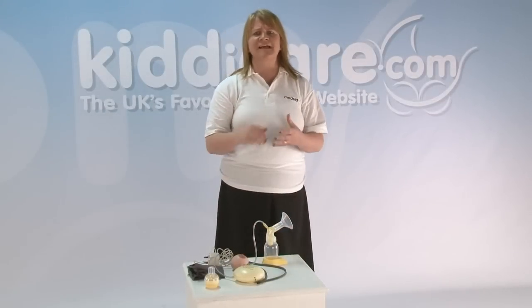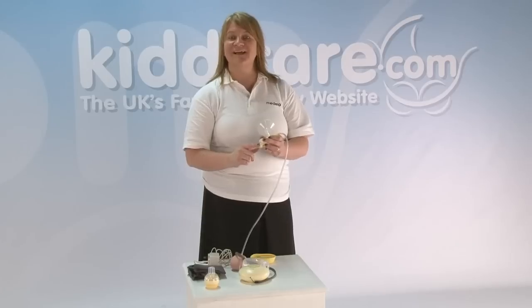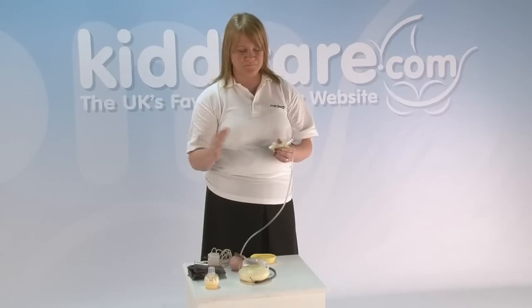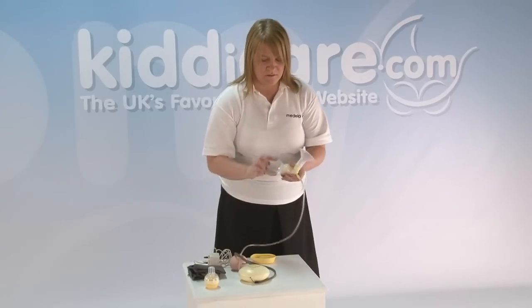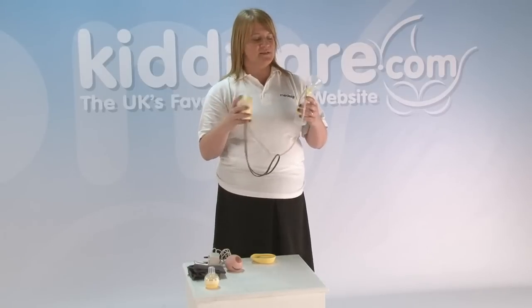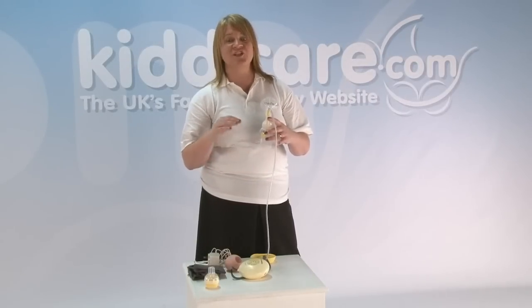If you're ever using your pump and find the vacuum really not working very well, there are a few things just to check. First, I would check that the white membrane is correctly fitted to the yellow valve — that's really, really important. If the white membrane isn't on, the pump doesn't suck. If it's damaged, the vacuum will be decreased, so you need to keep an eye on that and you do get a spare in your box. Check there are no kinks in your tubing and that you've got your tubing in the right hole. It's also really important to be upright when expressing — if you lean or tip and overfill the bottle past the valve, you increase the risk of milk backtracking down the tube.